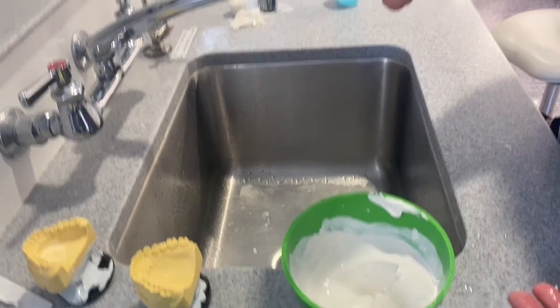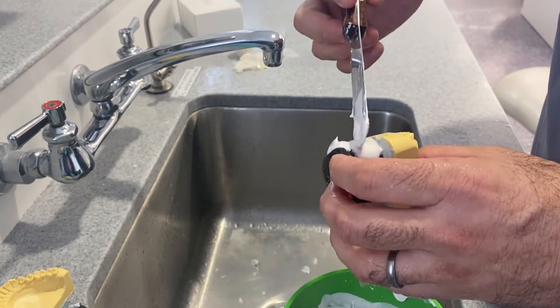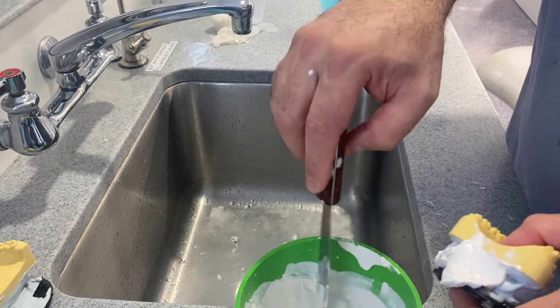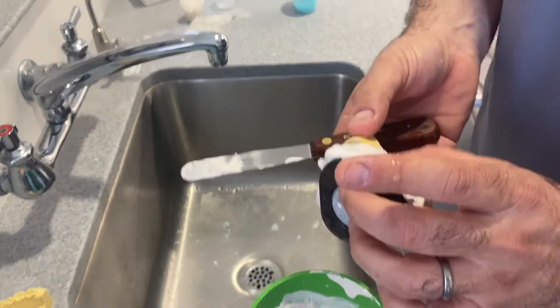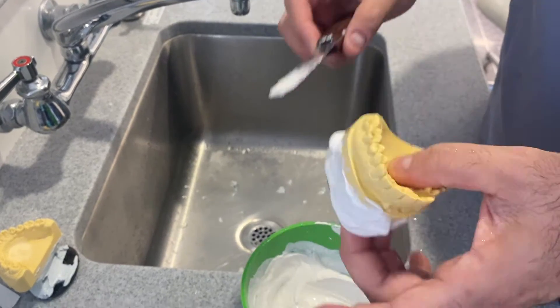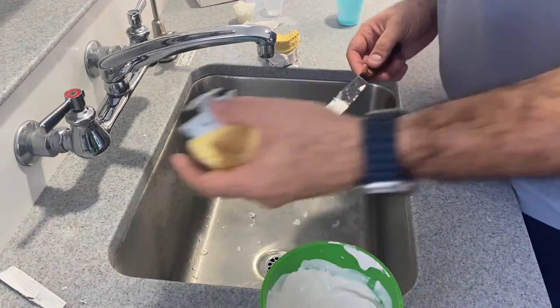With this consistency, we're going to start plastering things in. I want to have everything nice and wet and I'll be adding and filling the voids. I want to overdo it a little bit — make sure you have enough plaster but don't go on the inside of it. Overdo it a little bit, then let it sit. Meantime, work on the lower.